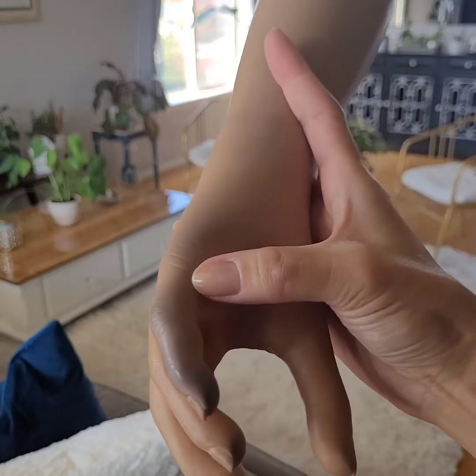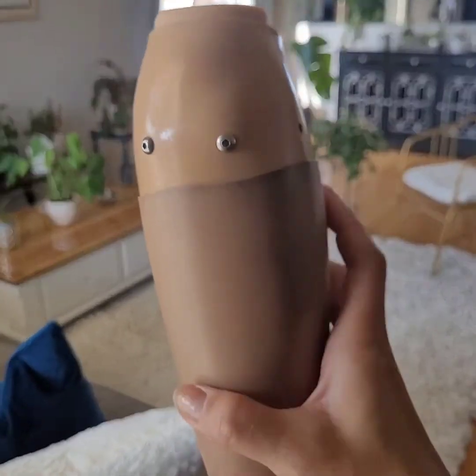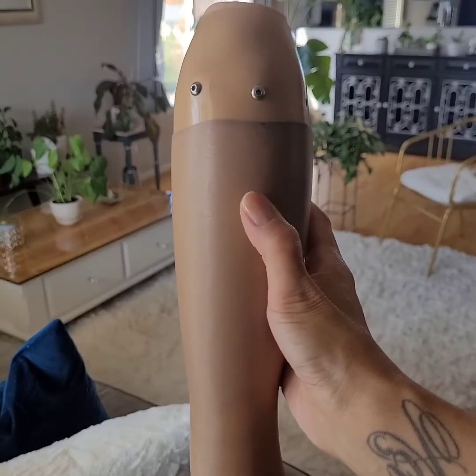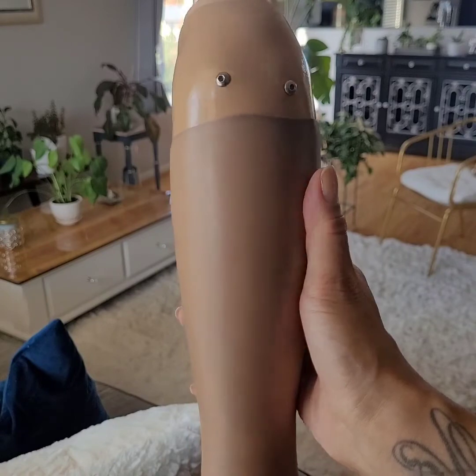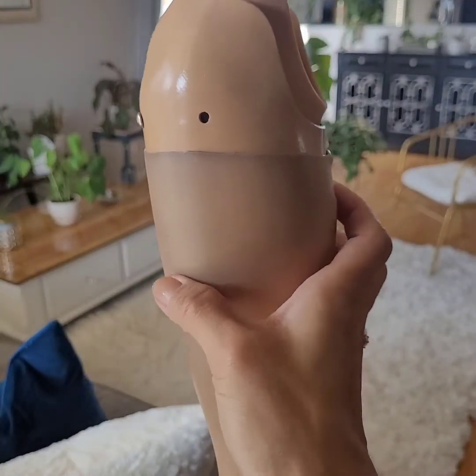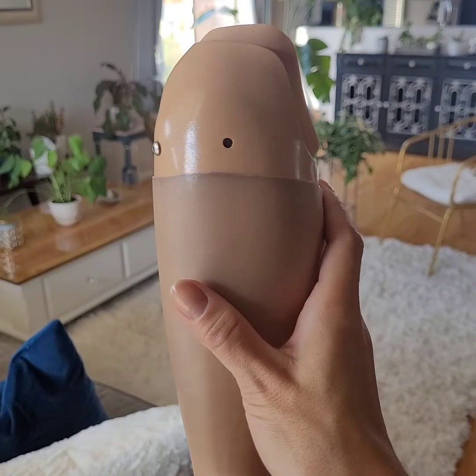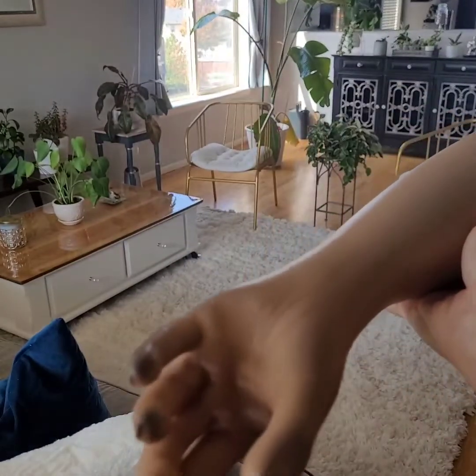This glove here, as you can see, gets dirty and stained very easily. The material is nice because it blends in — they have a lot of different colors that can match your skin to make it look nice and they try to match it as best as possible. But the one huge downfall is that it stains very easily, and while it does come with a cleaner, unfortunately the cleaner does not remove those types of stains.